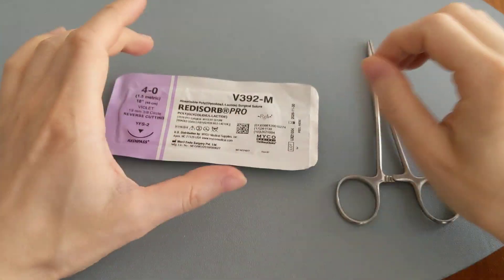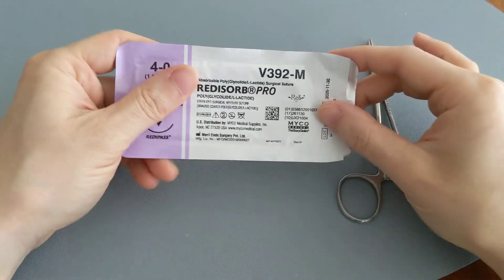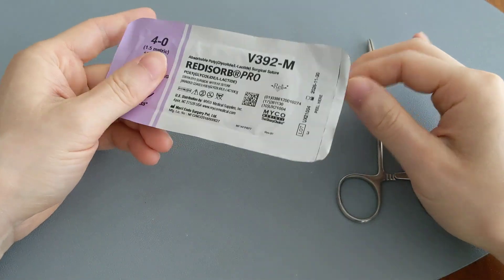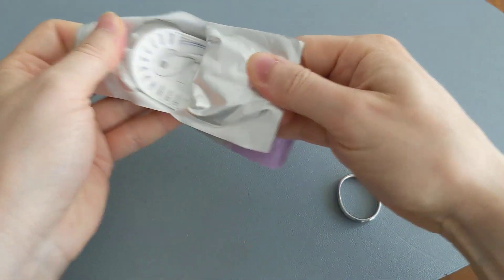Hey, so you want to know if purple stitches are dissolvable or not? Well, figured the best way to figure that out is just doing an unboxing right in front of you. So let's get started.